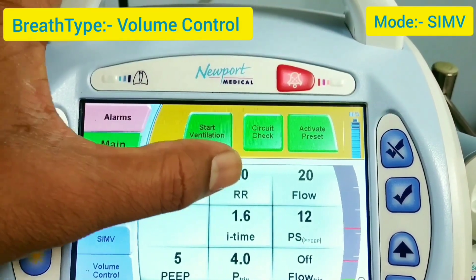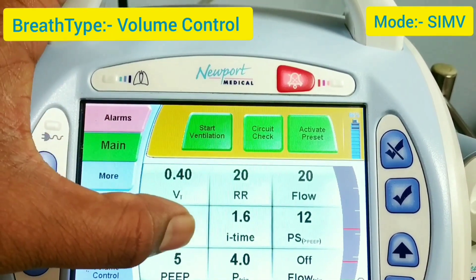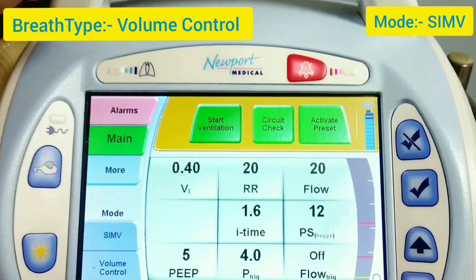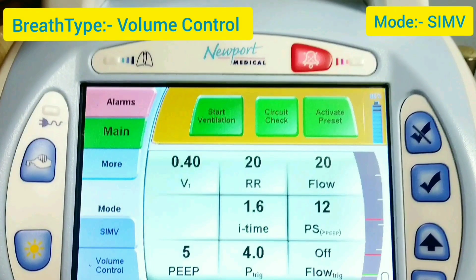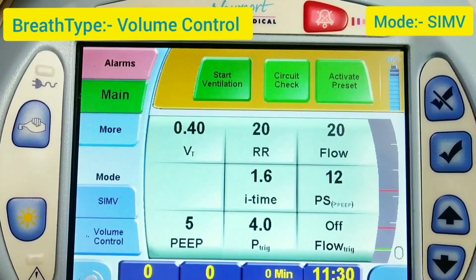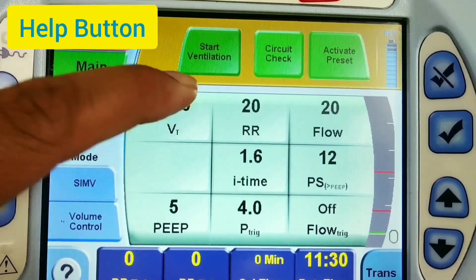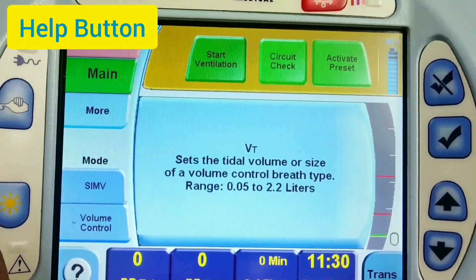In SIMV mode with volume control, these are the settings you can change according to the patient parameters, depending on weight and the desired flow. If you are confused about any parameter, press the question mark help button and touch any parameter — it will show what it is for.